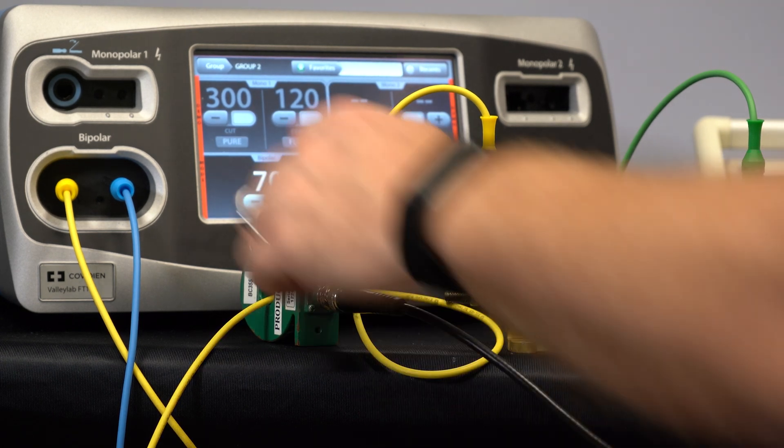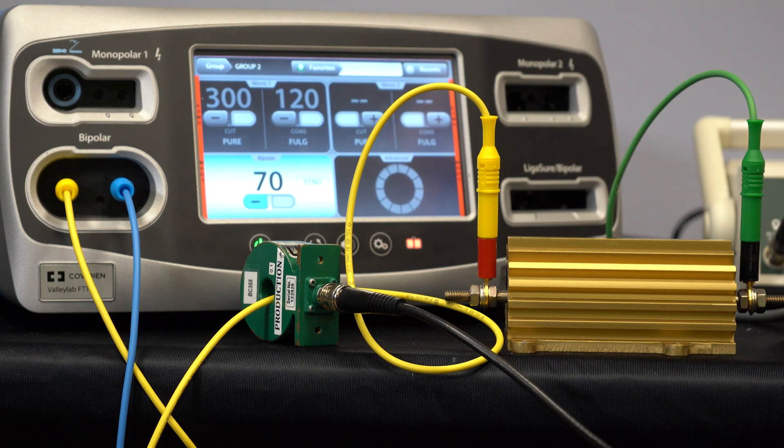And then we can trigger the generator and take our measurement for bipolar. Again we have it set to the maximum power for that mode.